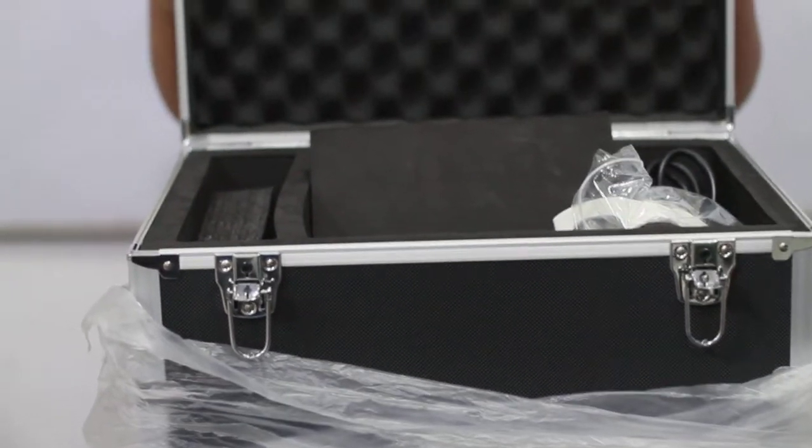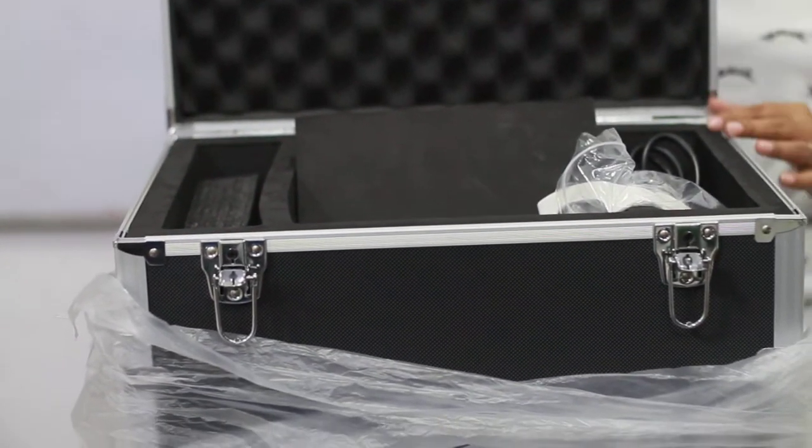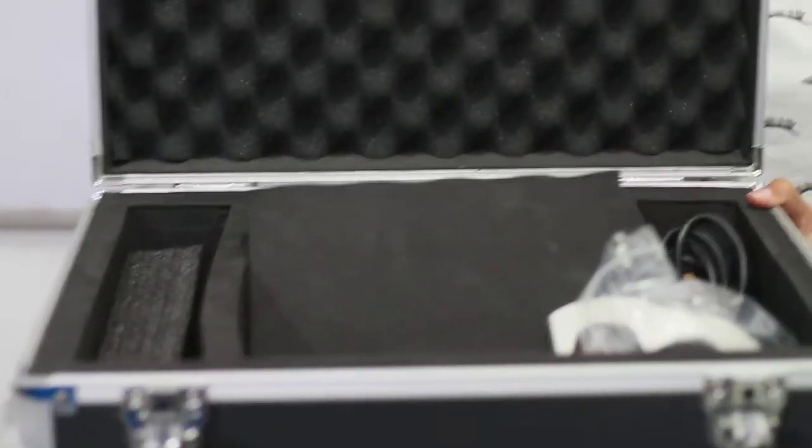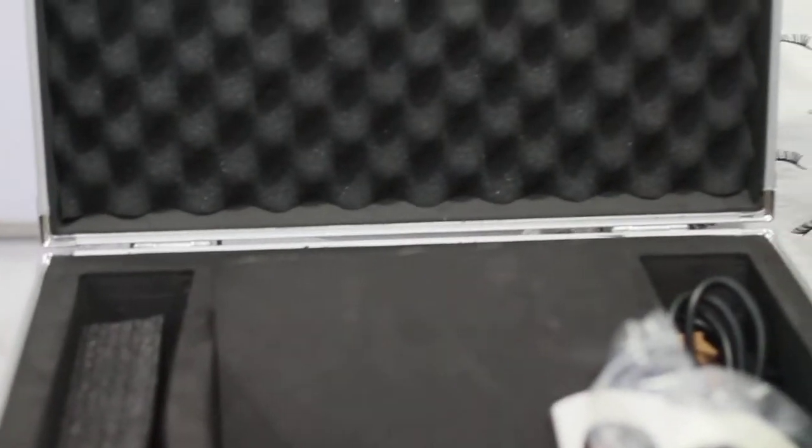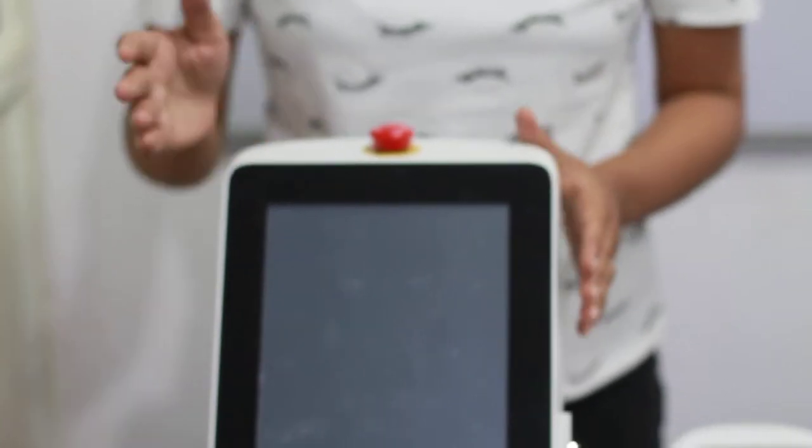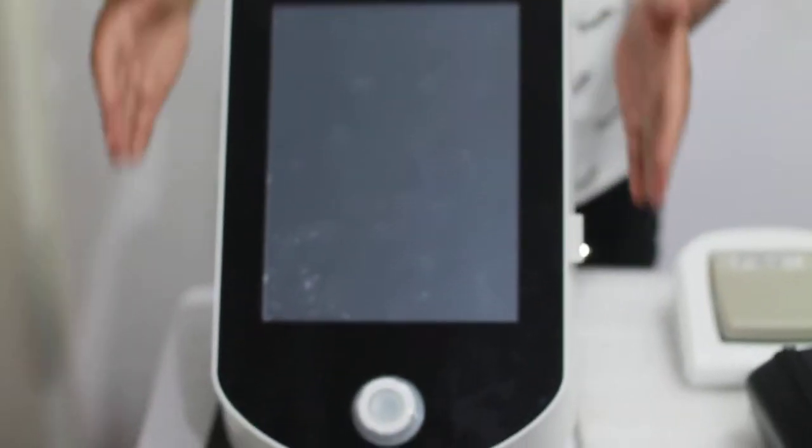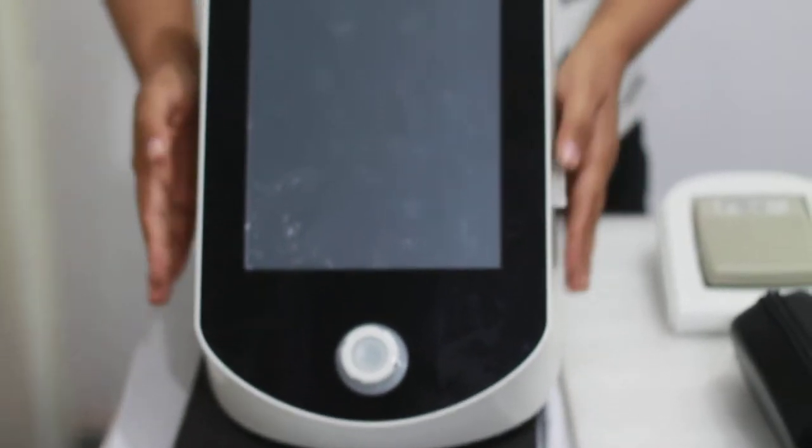Once you open this box, you will have all the equipment inside it. Once you unbox the things from the box that you have received, this will be your main unit.